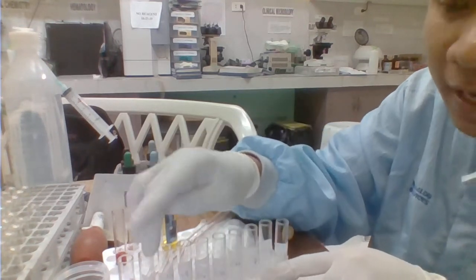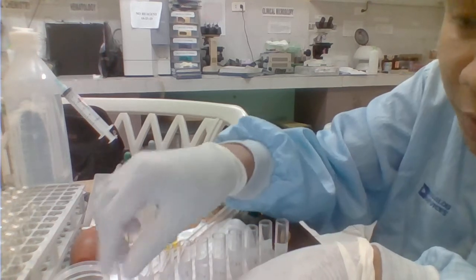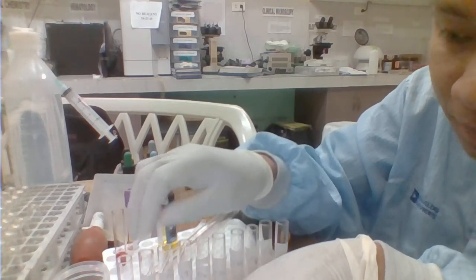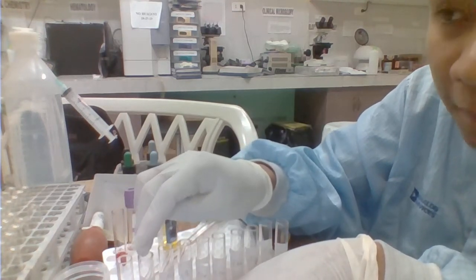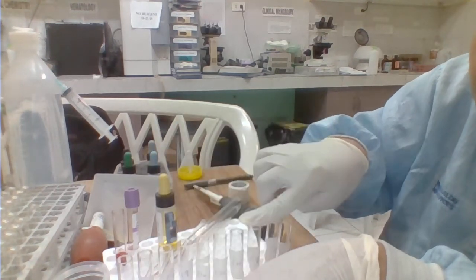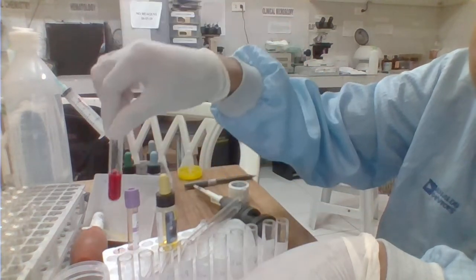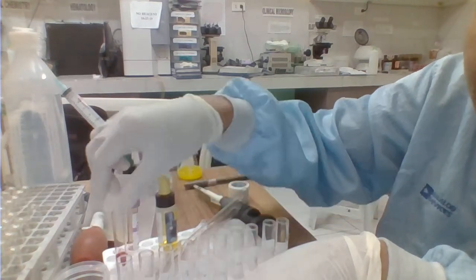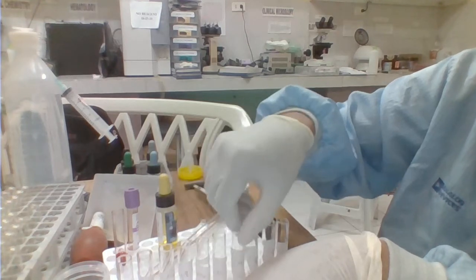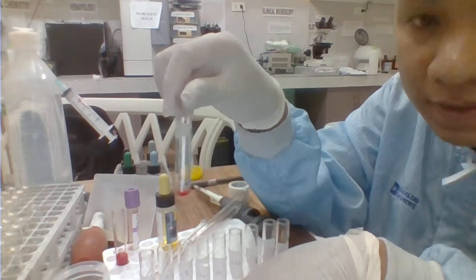So, ang lalagay natin dito sa tube number 2, beginning for this one, ang first tube wala siyang NSS. Maglalagay tayo ng NSS dito, 0.1 ml ng NSS natin. So this tube number 2 up to the last tube here. At lahat ng tube natin, beginning from tube number 1, maglalagay tayo ng 0.1 ml ng ating red cell suspension. So may nakalagay na siya. Okay, almost pareho sila ng content, only that yung tube number 1 ay wala siyang NSS.